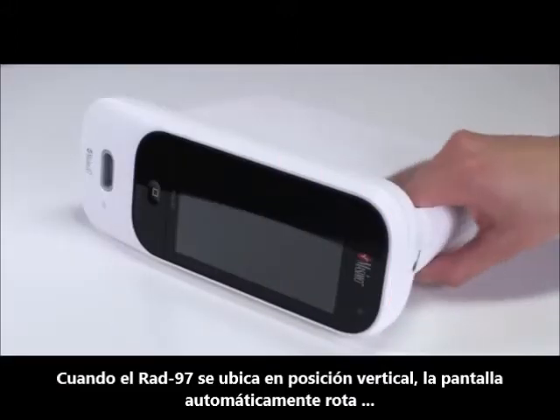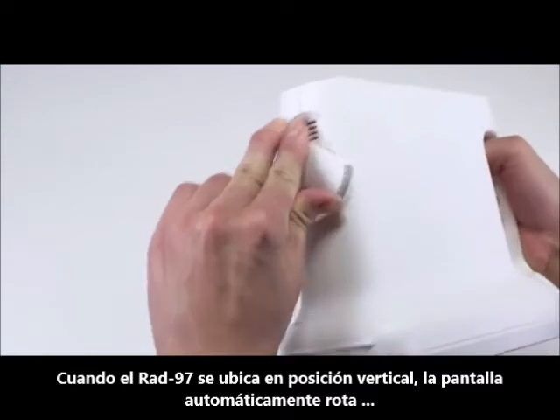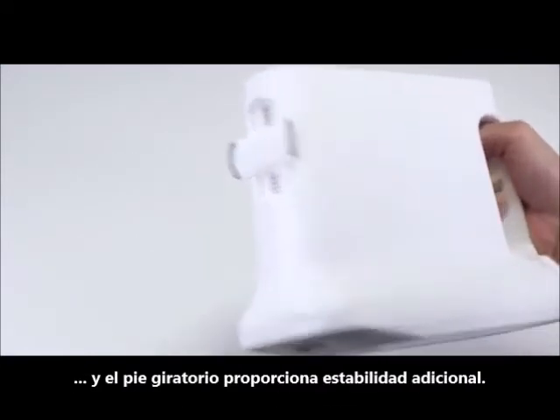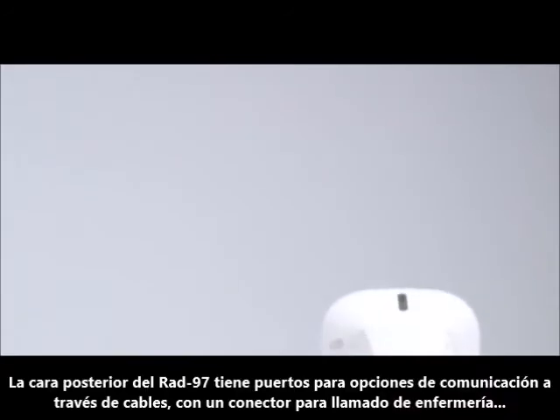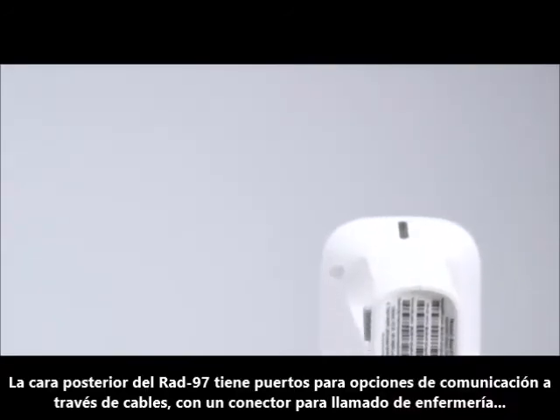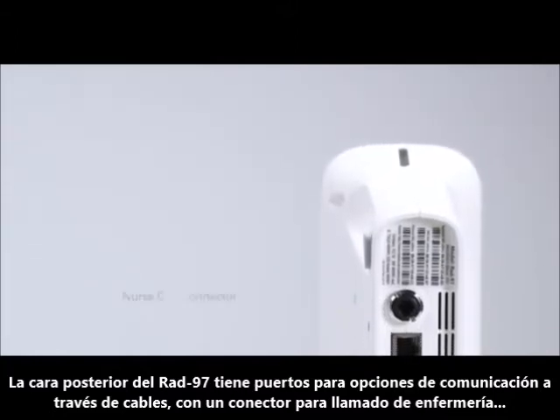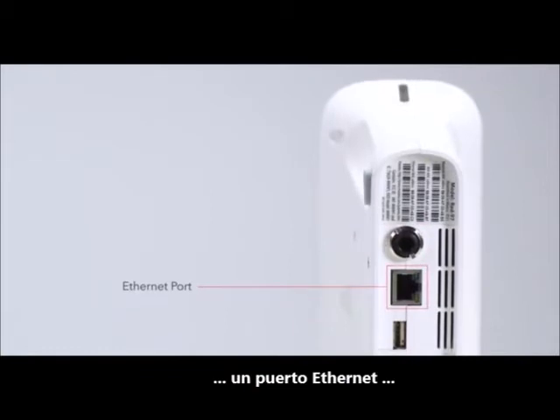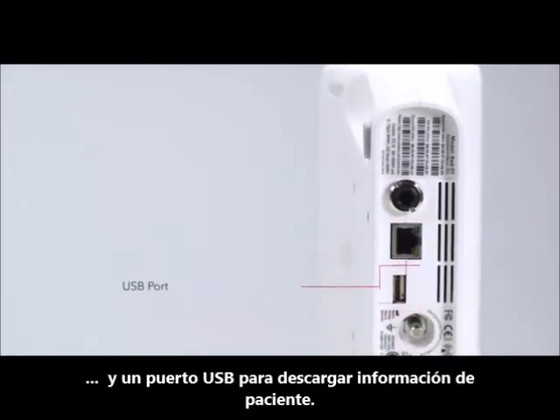When placing RAD97 in the vertical position, the display automatically rotates and the swivel foot provides additional stability. The back of RAD97 has multiple ports for wired communication options including a nurse call connector, an Ethernet port, and a USB port for downloading patient data.